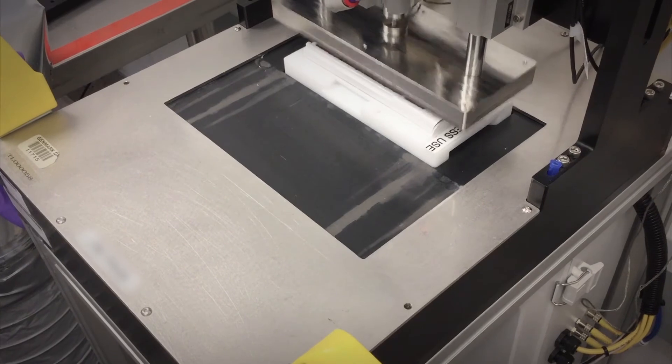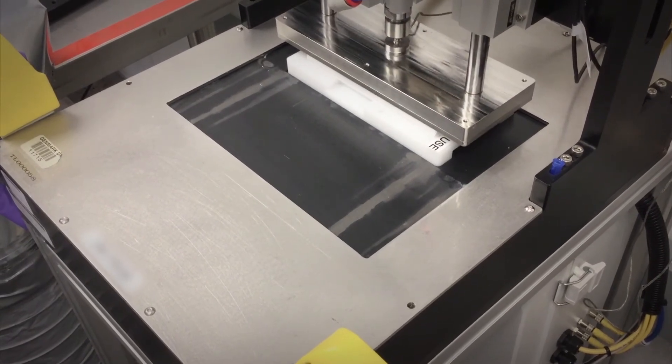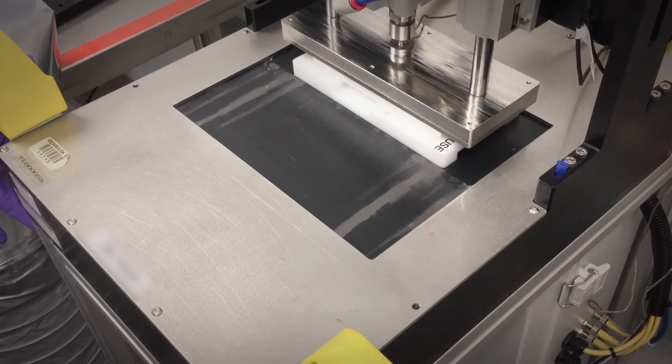Now let's take a look at the last step where we bring all these components together in final cartridge assembly. All of these components are tightly integrated and sealed into the self-contained cartridge to minimize the risk of contamination in your lab.